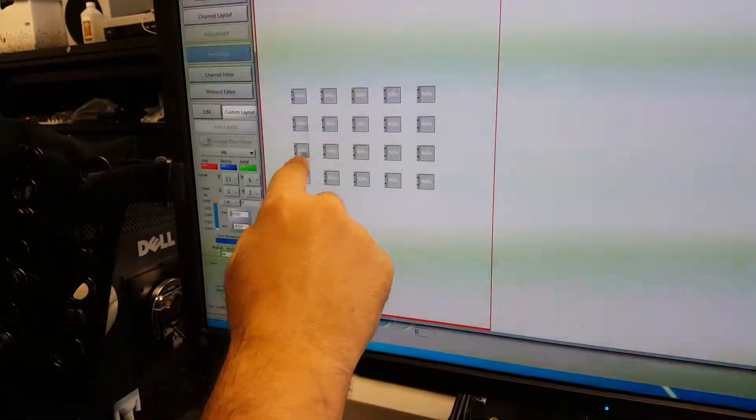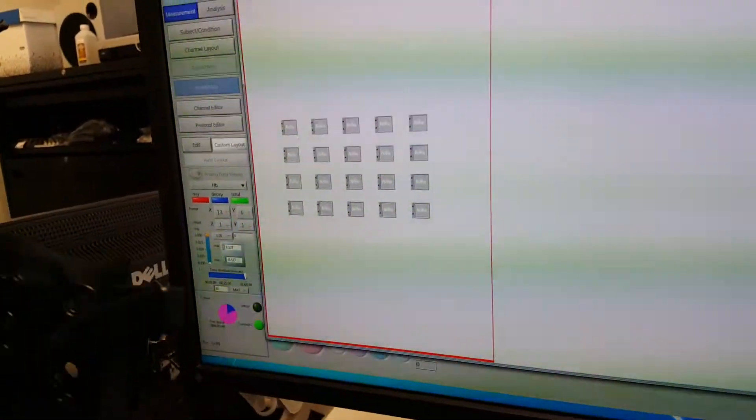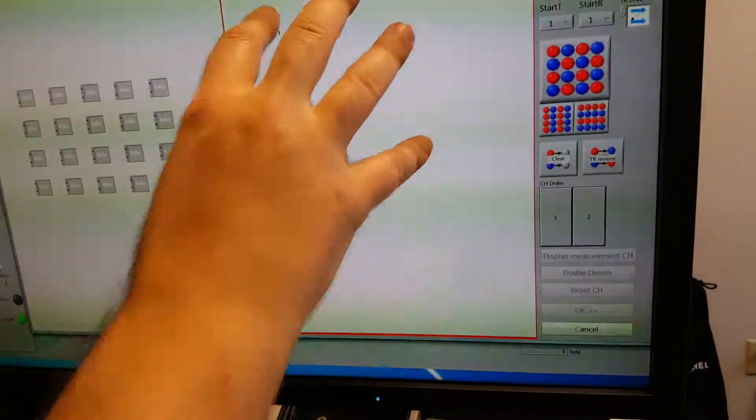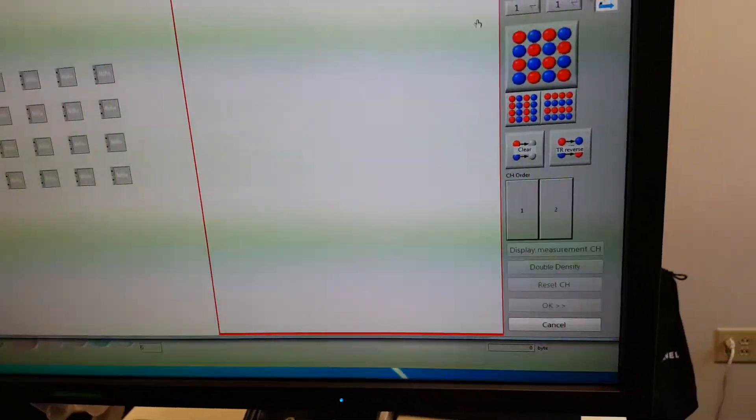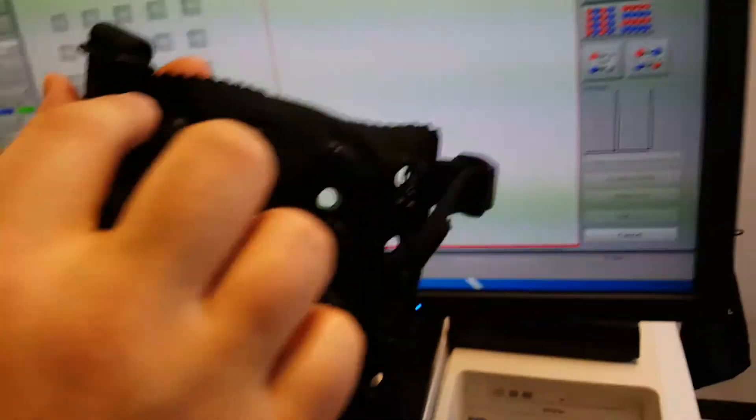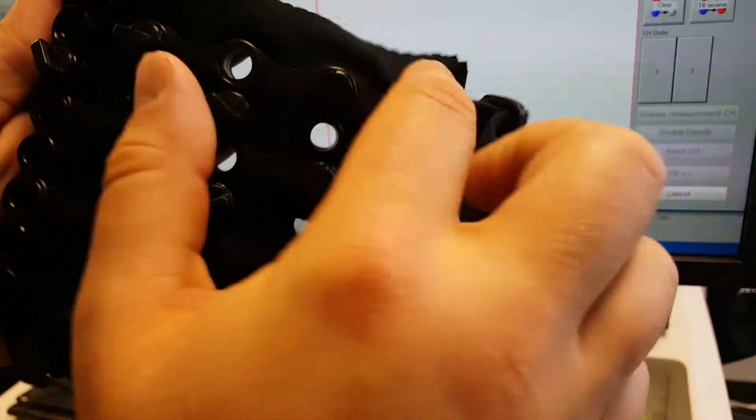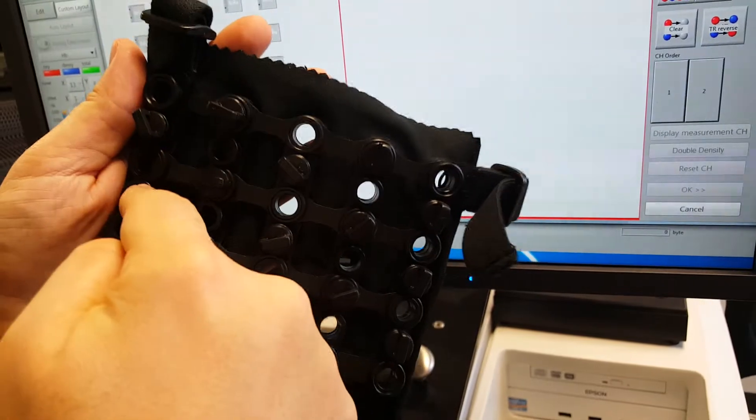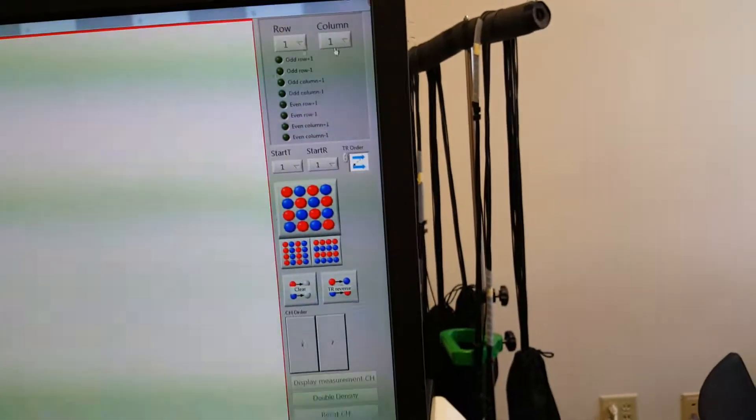So that's fine. Now we click over here and this is the second density on this side. Now this is one two three four five by one two three, so the second density is five by three.